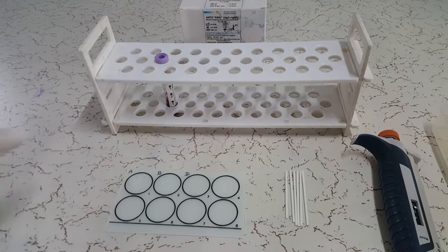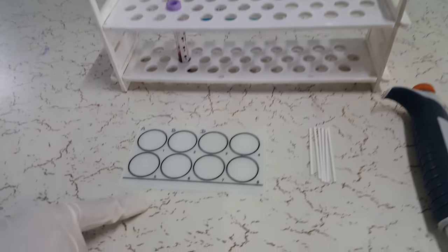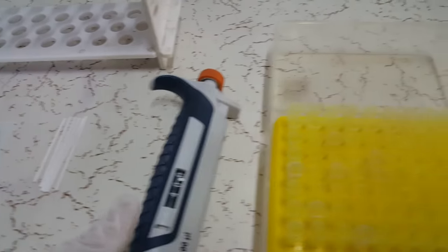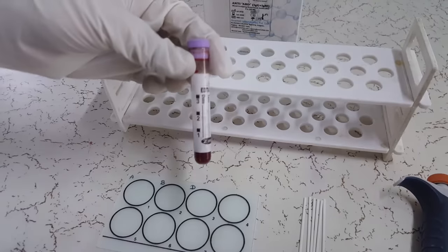Apart from this, you may require additional items such as glass slide, mixing sticks, clean and well calibrated pipette of 40 microliter volume, tips and the patient blood sample.